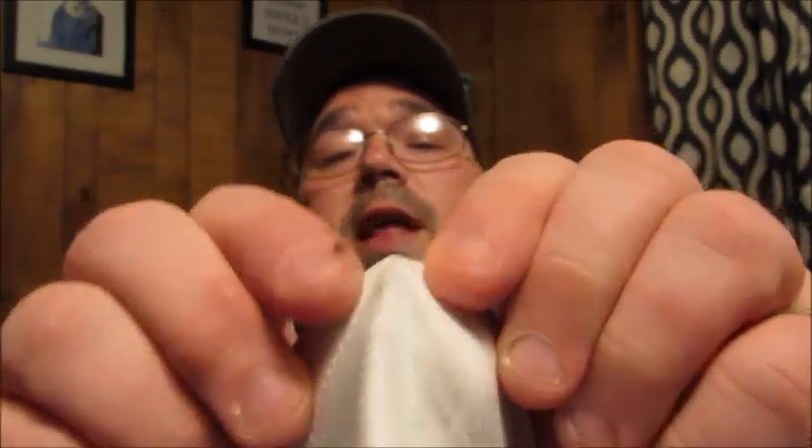You can kind of curve that to fit the contour of your nose. If you wear glasses, you really have to contour that just right to your nose, because a lot of excess steam when you breathe seems to come up through there and fog up your glasses. So you want to get a really nice seal so any air you're exhaling is hopefully going in the downward direction and out of your mask.